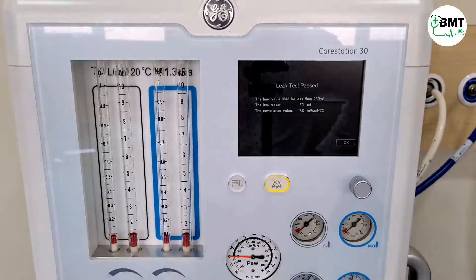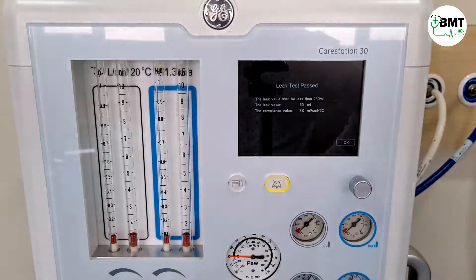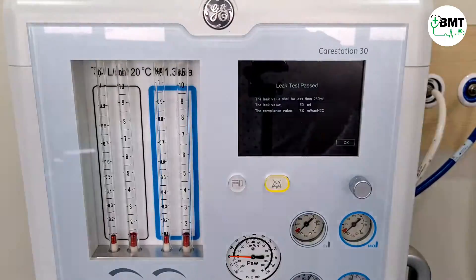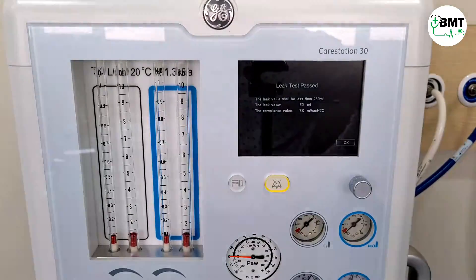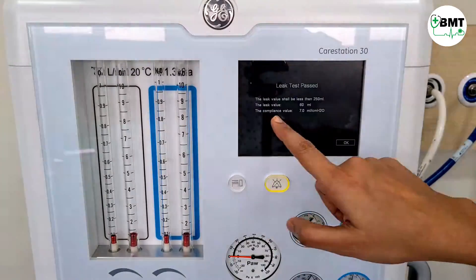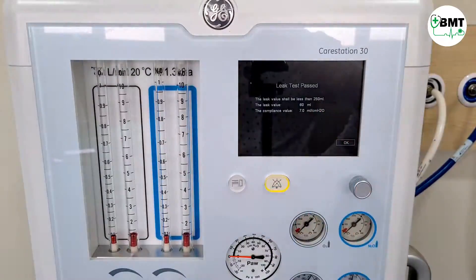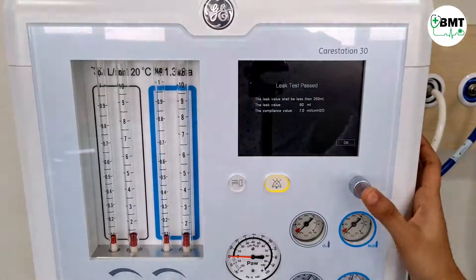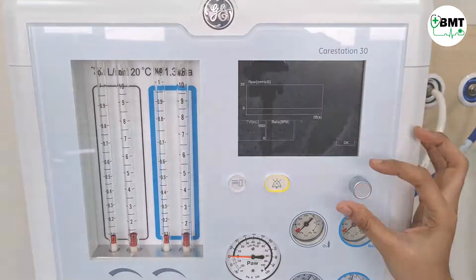Once filled, press the start button to start the leak test. The leak test has now passed. The leak value should be less than 250 ml — the current leak value is 60 ml, so it passed. Press OK.